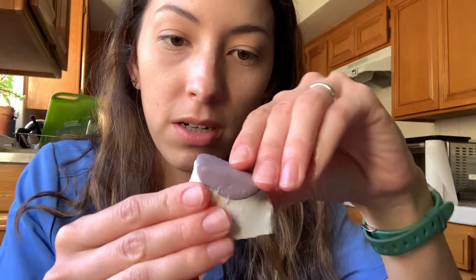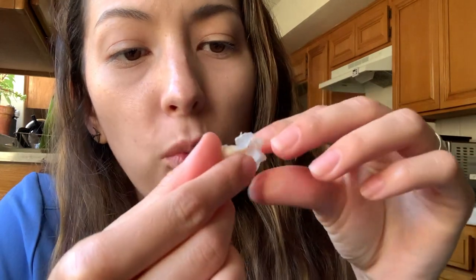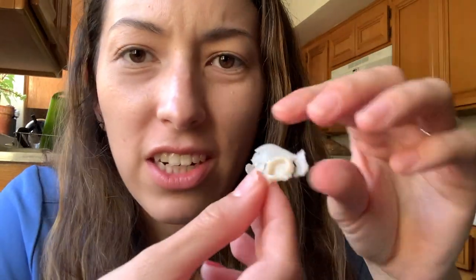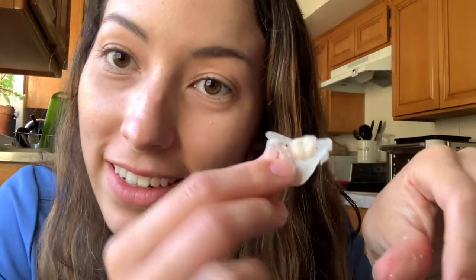Normally you would do this in the sim lab, but we're not allowed in the sim lab anymore. Okay, this could work — I have a shell here. Here's the shell, it came out fine. Since I don't have my handpieces here I can't fix it up right now, but on Wednesday when I get to school I'll trim all of this off. I'll actually relieve the internal the day of, because who knows how it will go — but here it is, here's the shell.